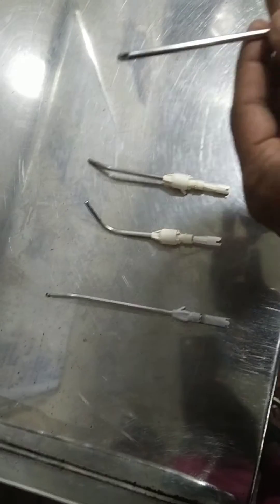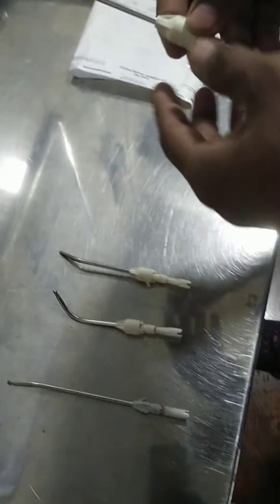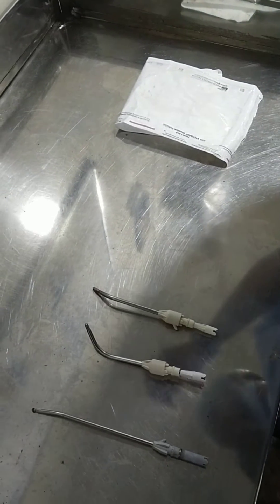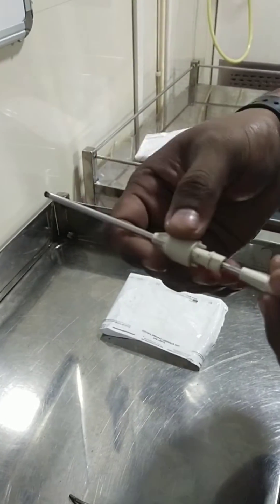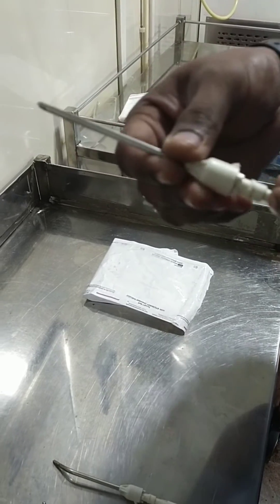When you are reusing the blade, what happens is water will leak in the locking function — the water will be getting leaked. This is the main reason the blade was damaged. Because when you open this blade you can see that so many scratches are there, and when you rotate you can feel the sound. This is because of re-usage of the blade.